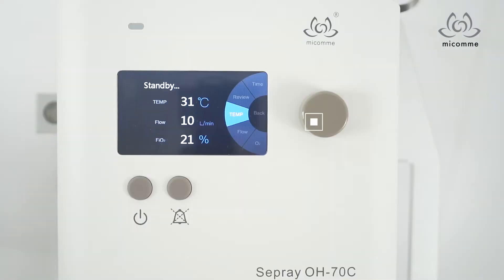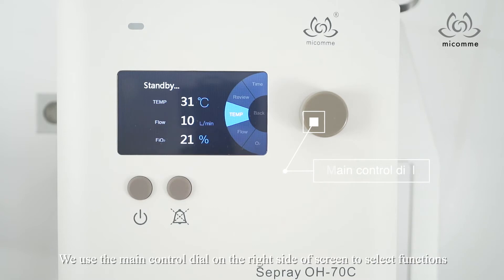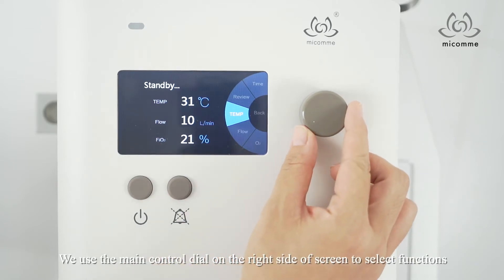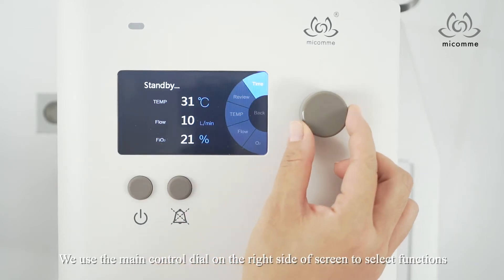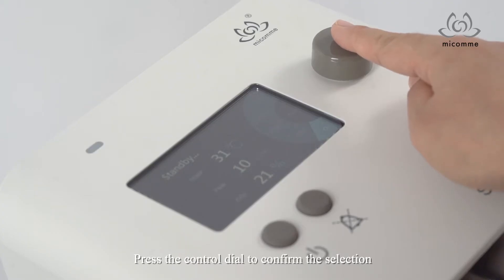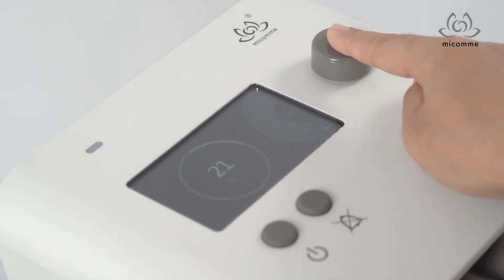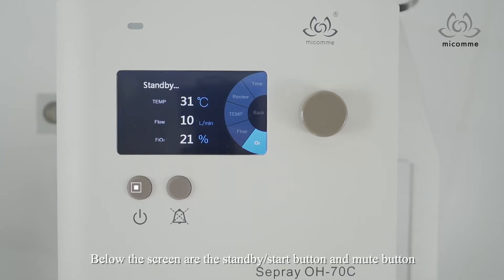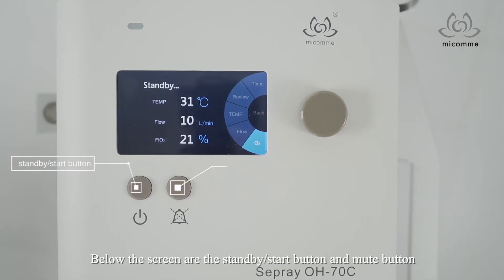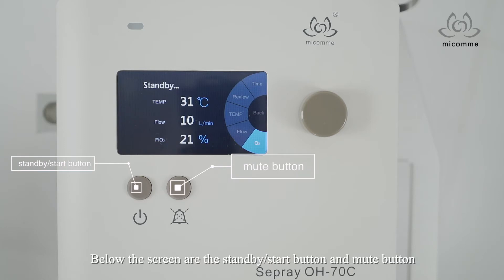Now we are going to see the operation interface. We use the main knob on the right side of the screen to select functions. Press the knob to confirm the selection. Below the screen are the standby start button and mute button.